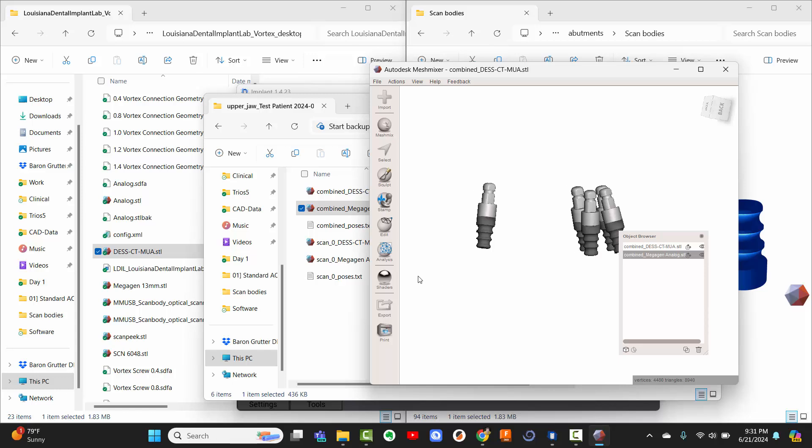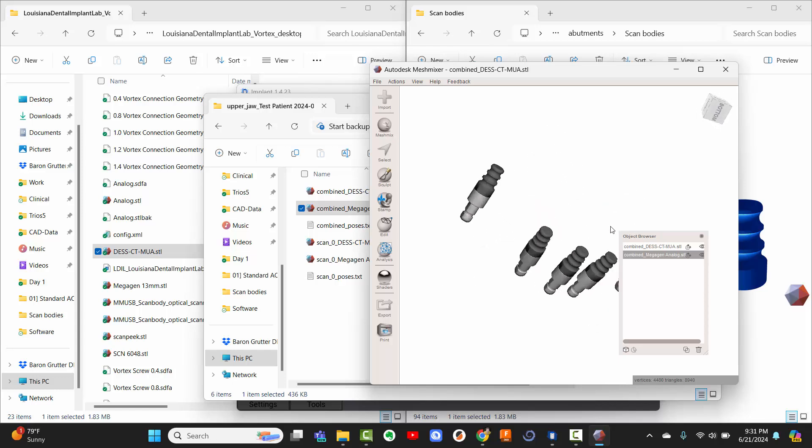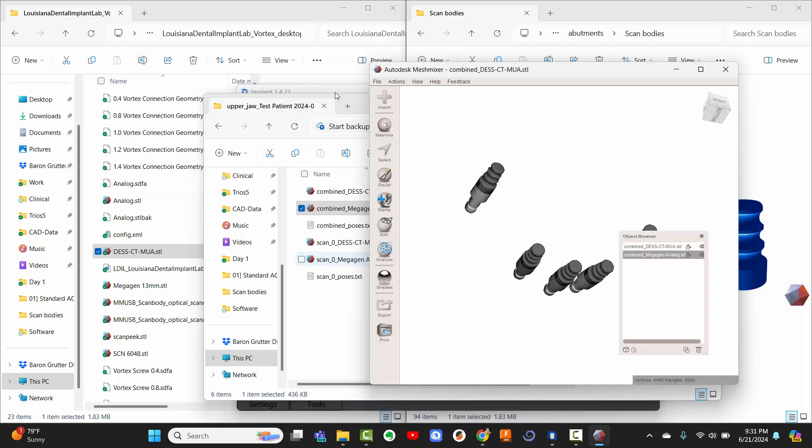So you can see they line up perfectly. You don't have to do any sort of orientation. The way they are aligned in ExoCAD is aligned perfectly to the way they are aligned in the implant scanner software. I can't say that's the case for 3Shape because various CAD softwares, they'll flip an axis here or there. Not a big deal if that's the case in whatever software you're using. When you export it, you might have to turn it 90 degrees or 180 degrees before you integrate it within the software. But if you're using ExoCAD, it's as simple as drag and drop.